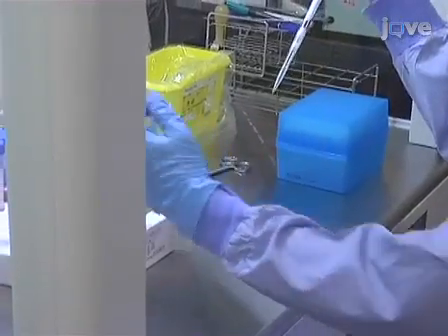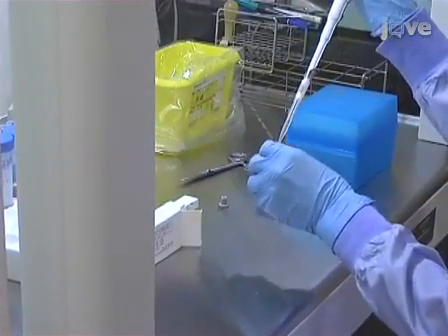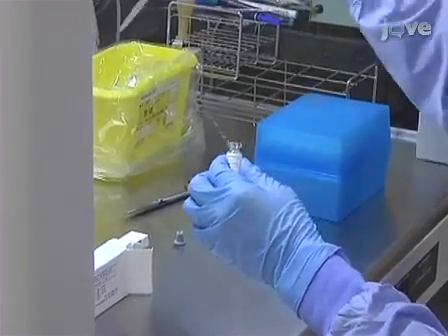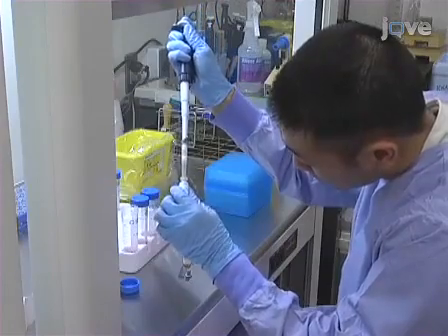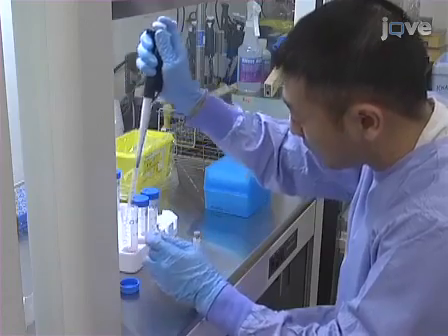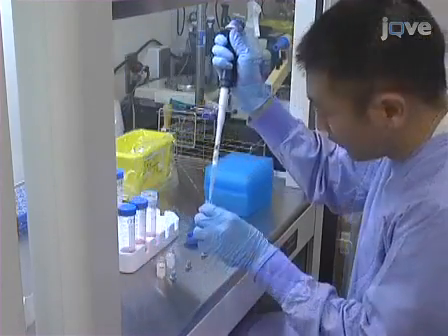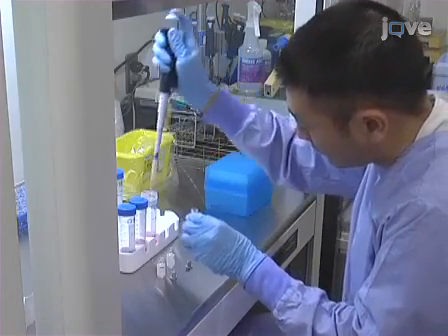To reconstitute the anti-PV1, PV2, and PV3 antibodies, add 0.5 millilitres of water to each vial, then transfer each antibody solution into separate tubes containing 4.5 millilitres of maintenance media. Some lots of anti-PV2 antibody are provided in reconstituted form; for such lots, addition of water for reconstitution is not necessary.